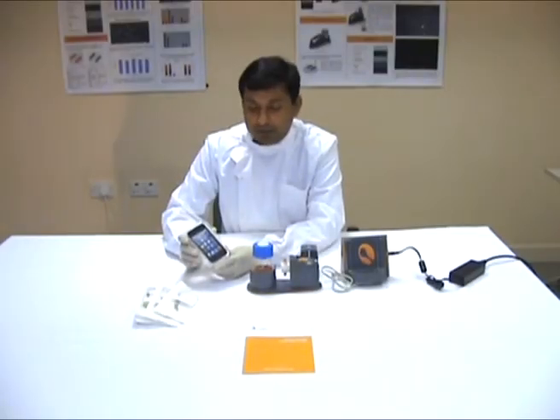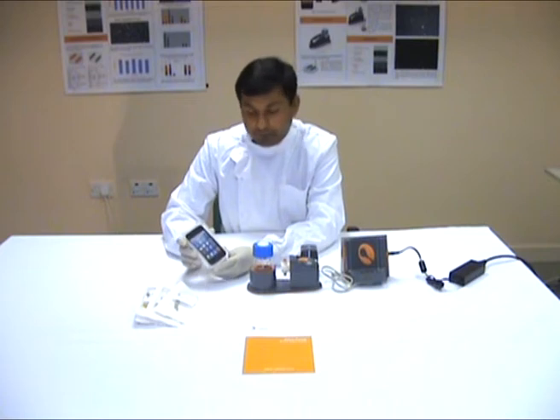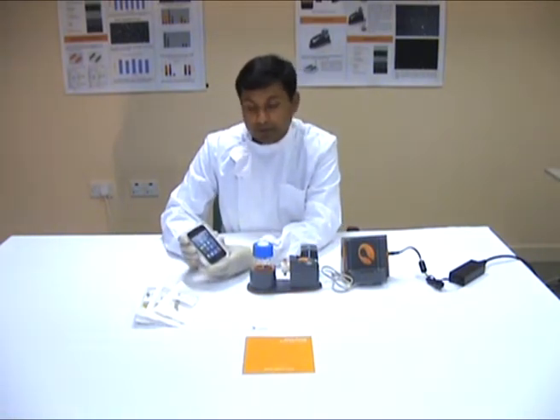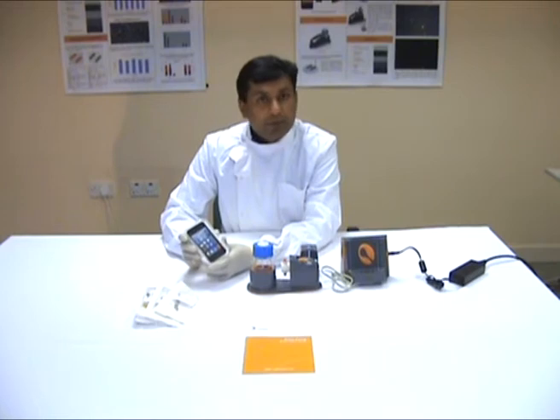This is the iPod touch which comes with the KEMA set. You need to power this on first then you have to connect it to the computer and connect it to the iTunes and download the iKEMA app from the iTunes.